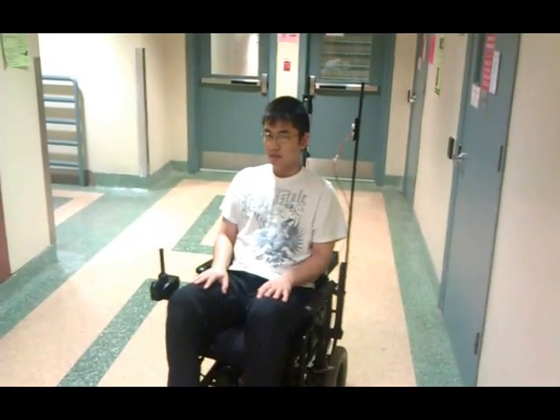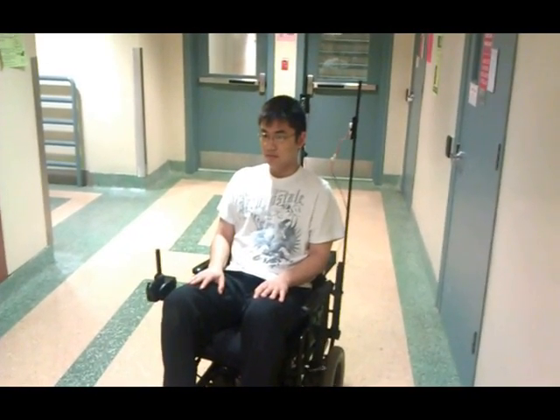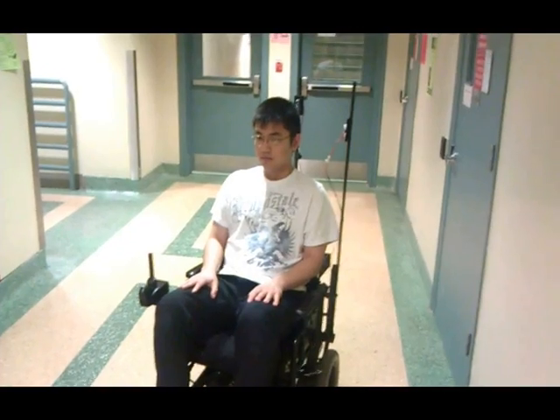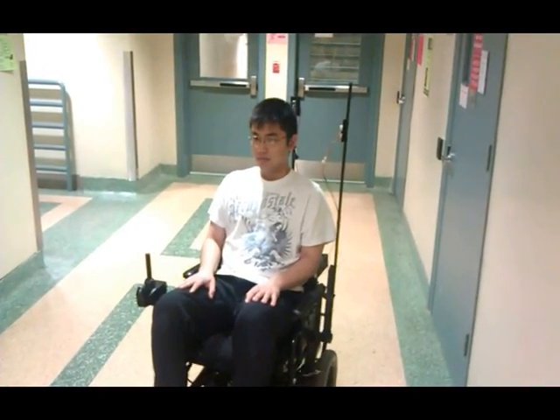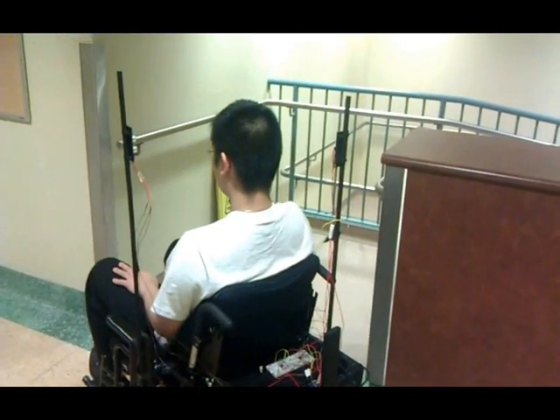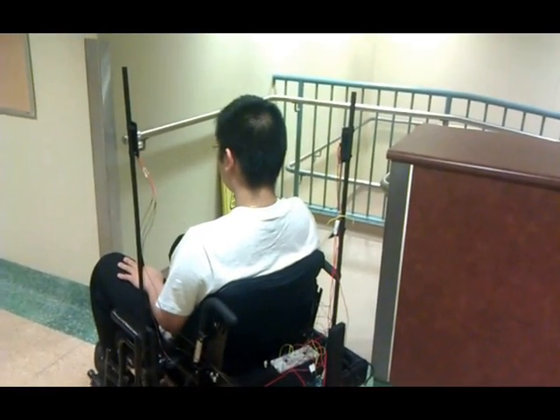As you can see, we have both the right and the left working properly. Now we are going to try to go forward by tilting the head backwards. As you can see, the wheelchair is moving forward when you tilt the head backwards, and it stops when you put your head back into regular position.